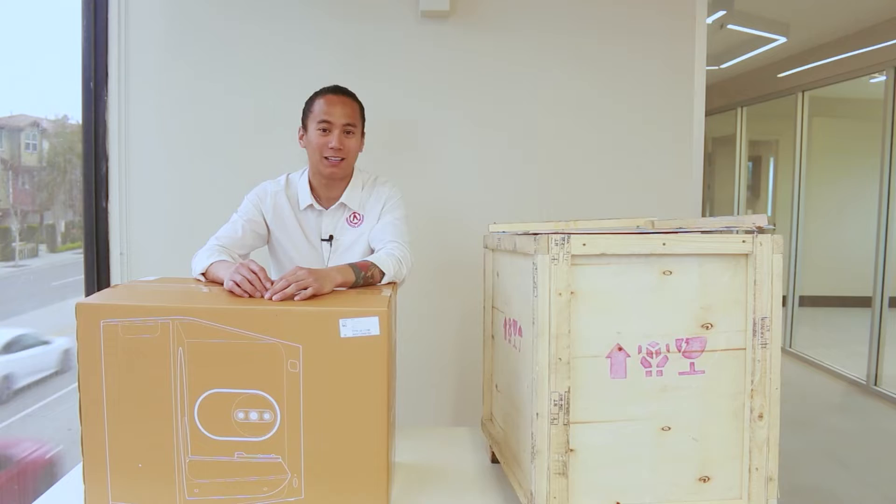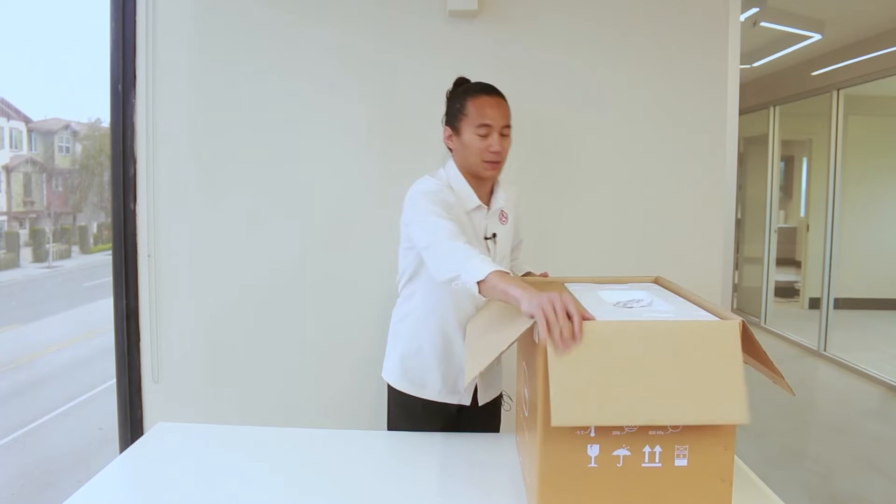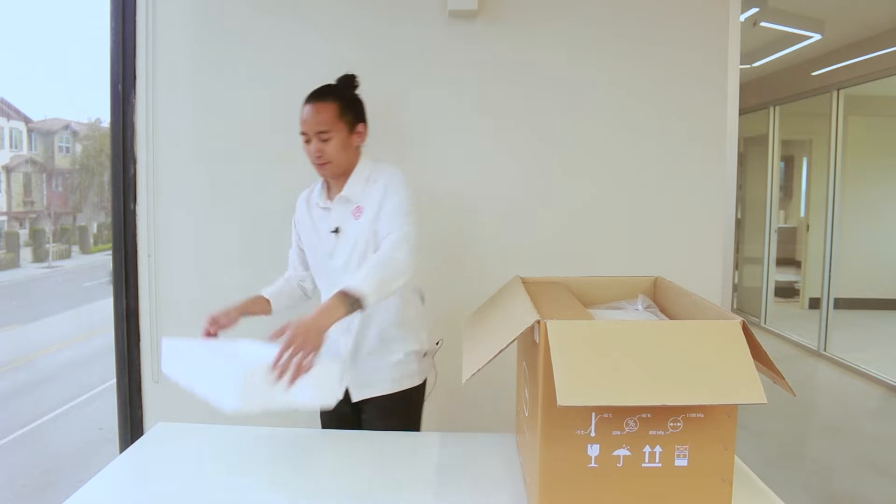As you can see here, we've already uncrated it. Let's go ahead and open up the box. The first thing you're going to notice is a large piece of styrofoam. Let's go ahead and put that to the side.